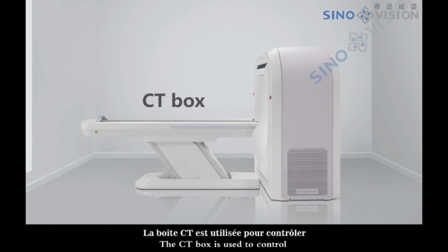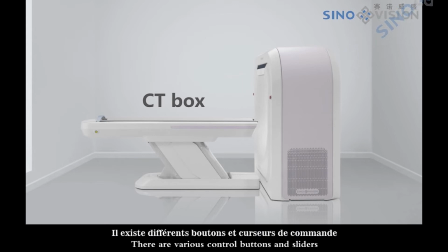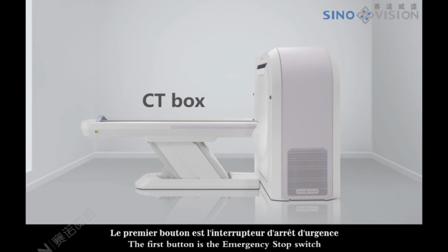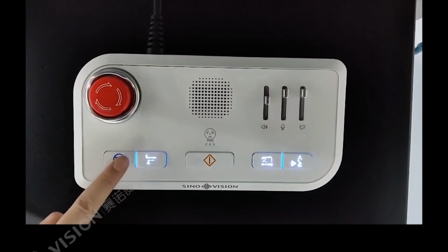The CT box is used to control the CT system remotely to perform scanning and mechanical movement. There are various control buttons and sliders. We will introduce them one by one. The first button is the emergency stop switch. Be careful not to press it by mistake.